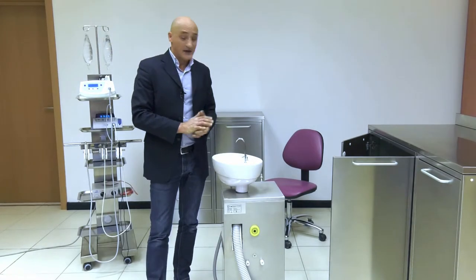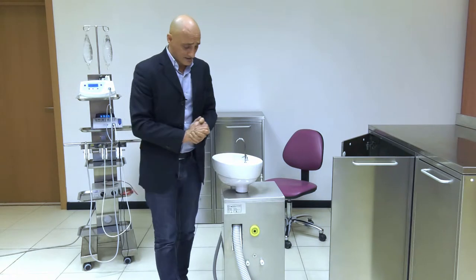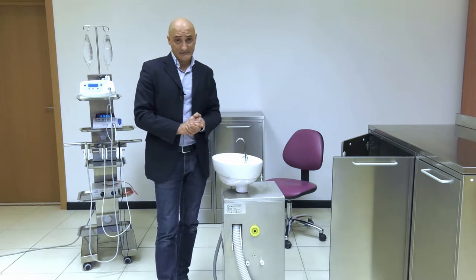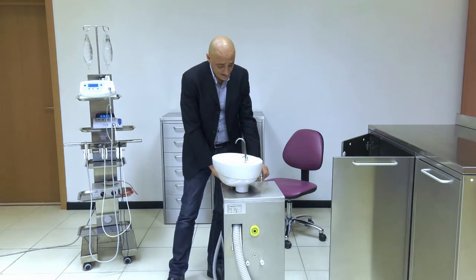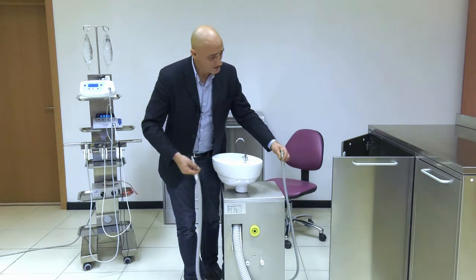In our configuration system, among the various options, you may also add our SaniVac system. The SaniVac system allows you to sanitize and disinfect the whole suction line, from the suction cannulas all the way to the exhaust tube.